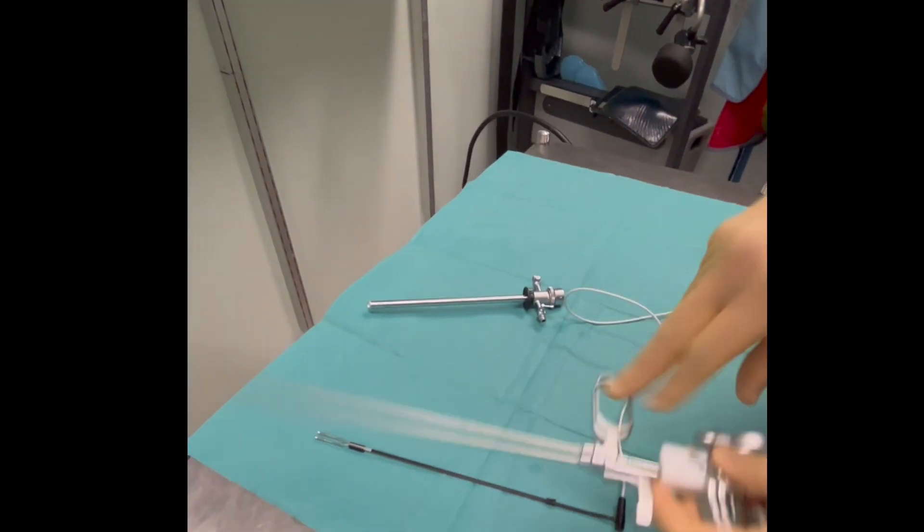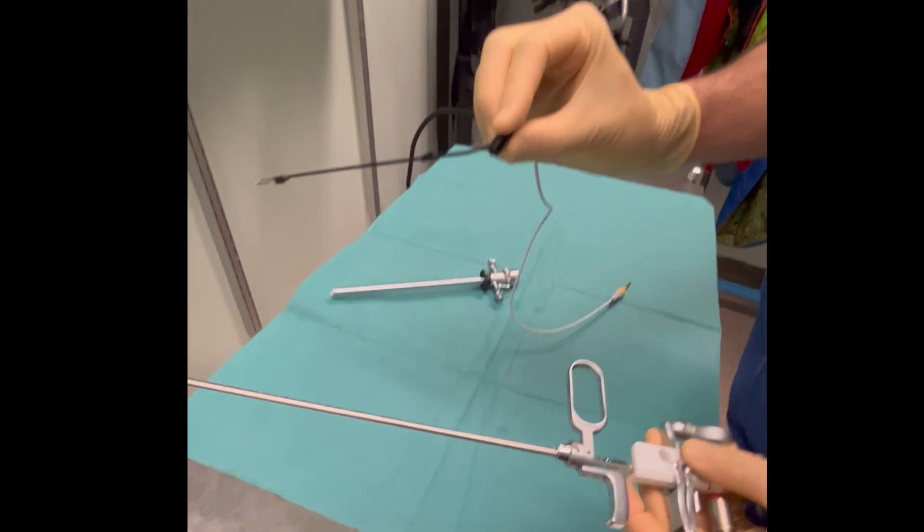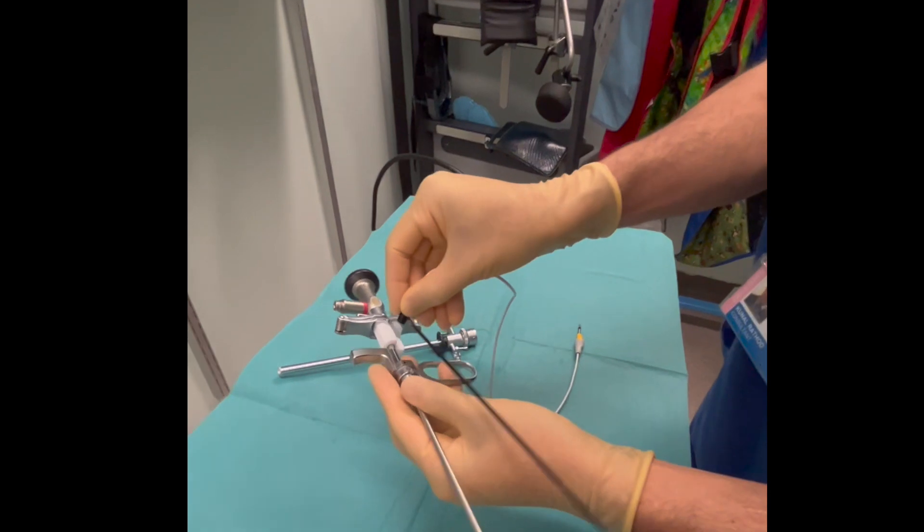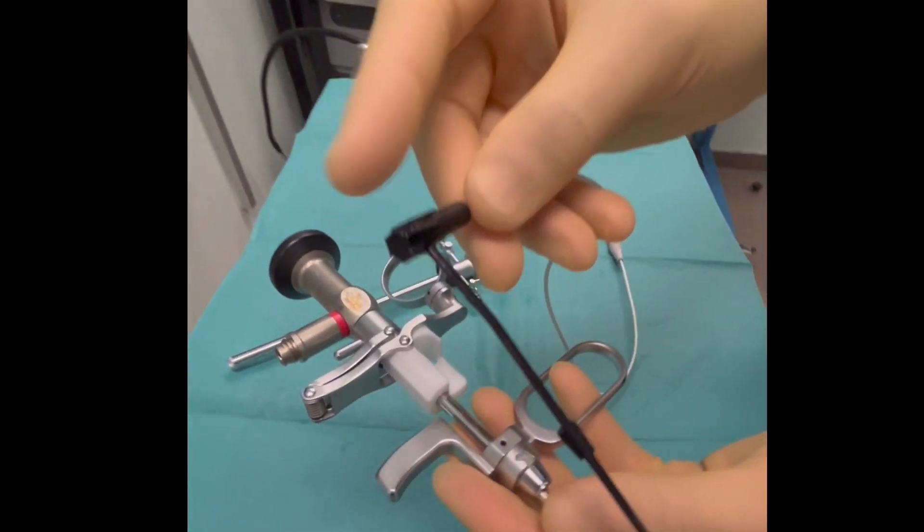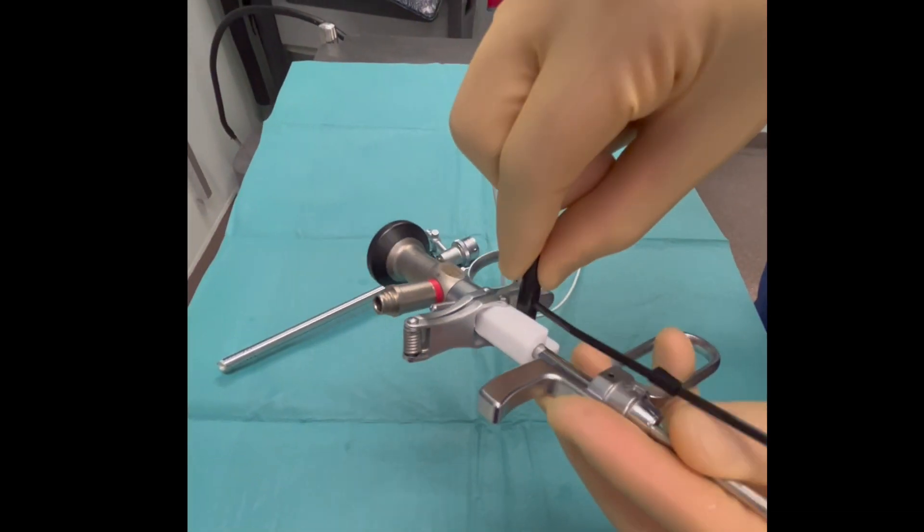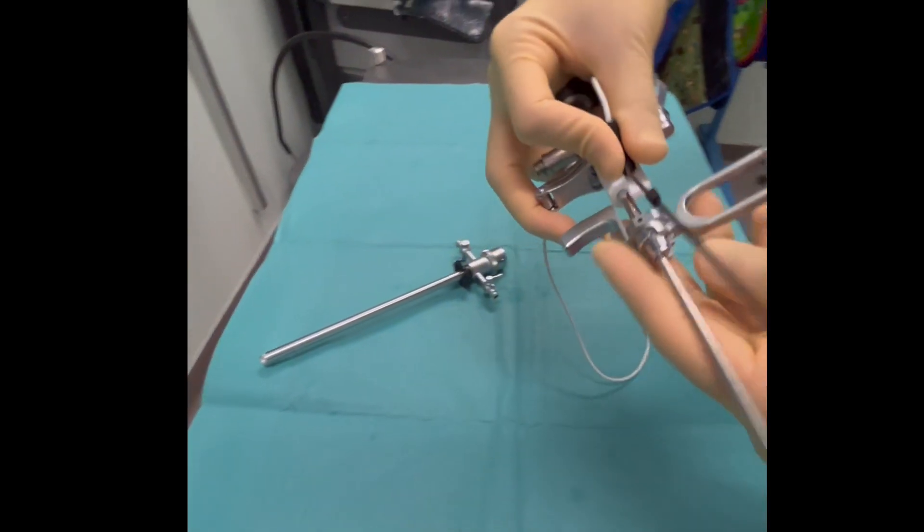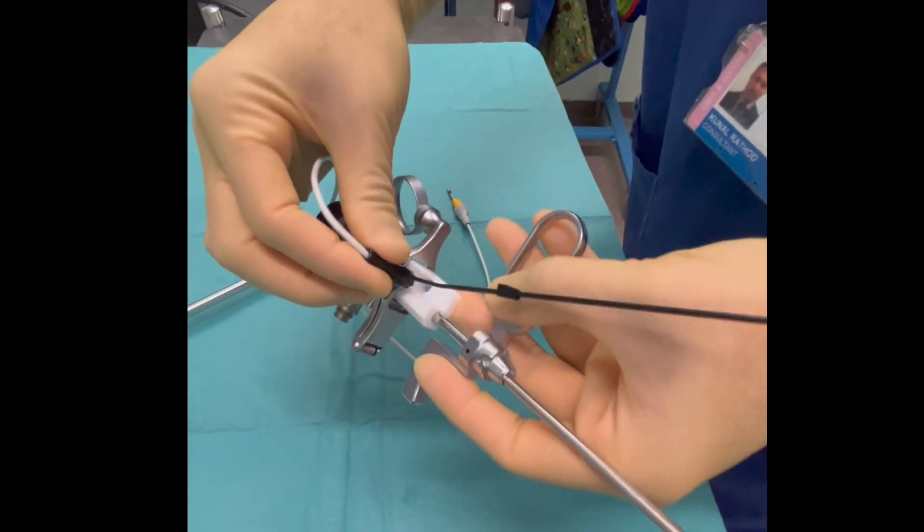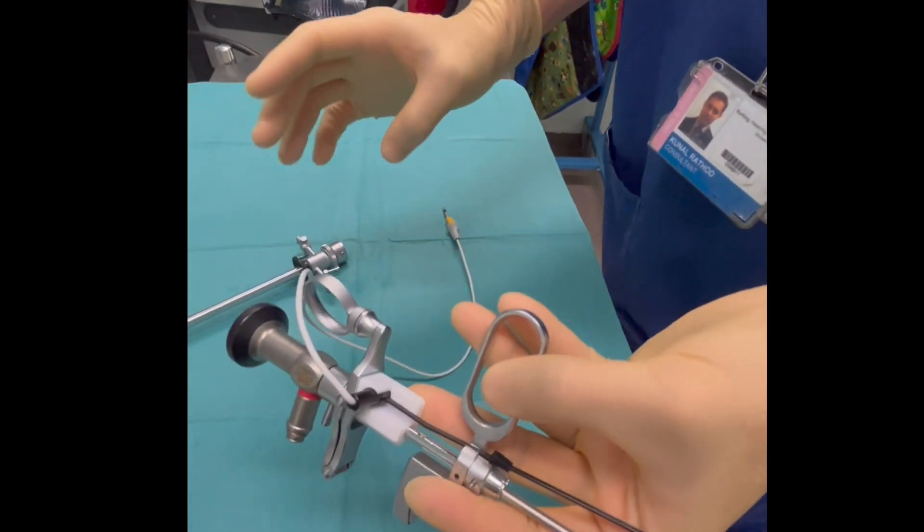Attaching an electrode to the system is very easy. The base end is fixed, and there is a small black knob which is inserted into the system.